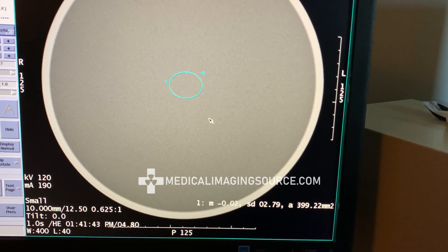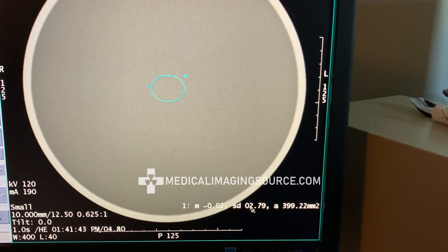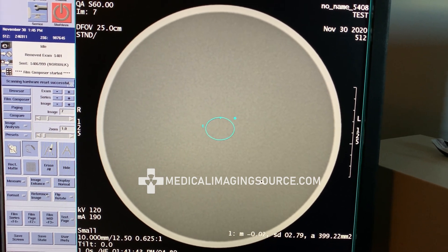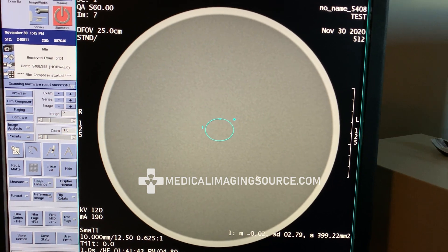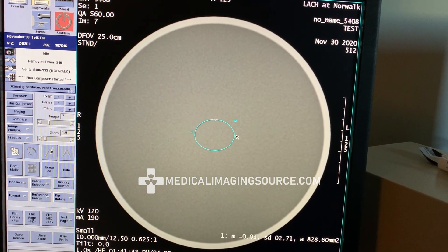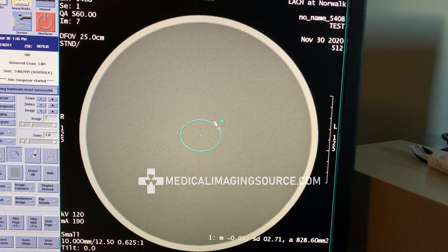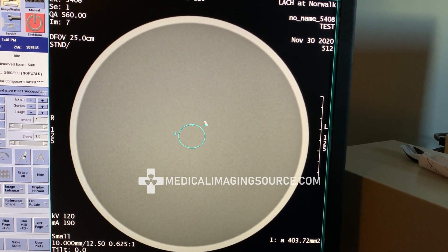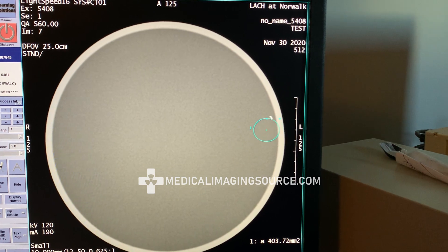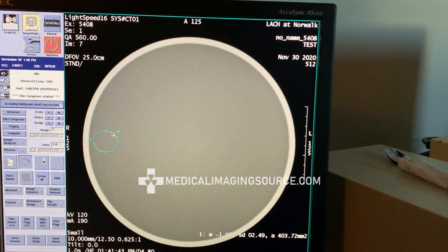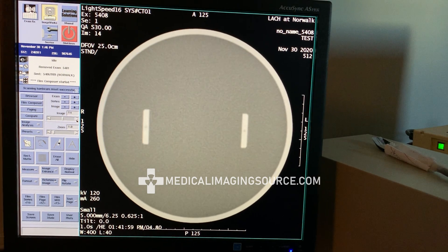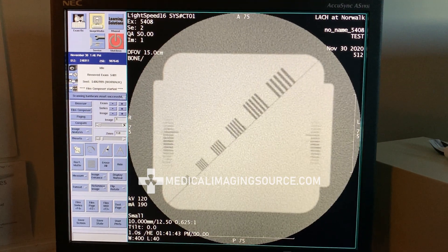We're going to use that to measure all around. As you can see, our mean is in spec — standard spec for water mean value is plus or minus three Hounsfield units. Standard deviation doesn't really have a maximum value; it's more of a relevance indicator, though I've seen many sites use a standard deviation of five as their maximum for certain exams. We'll get a reading in the middle, up top, at the bottom, on the right, and on the left, and use those to calculate our average. You can also scroll through all the images to make sure there's no ring artifact, no blur, and no anomalies.